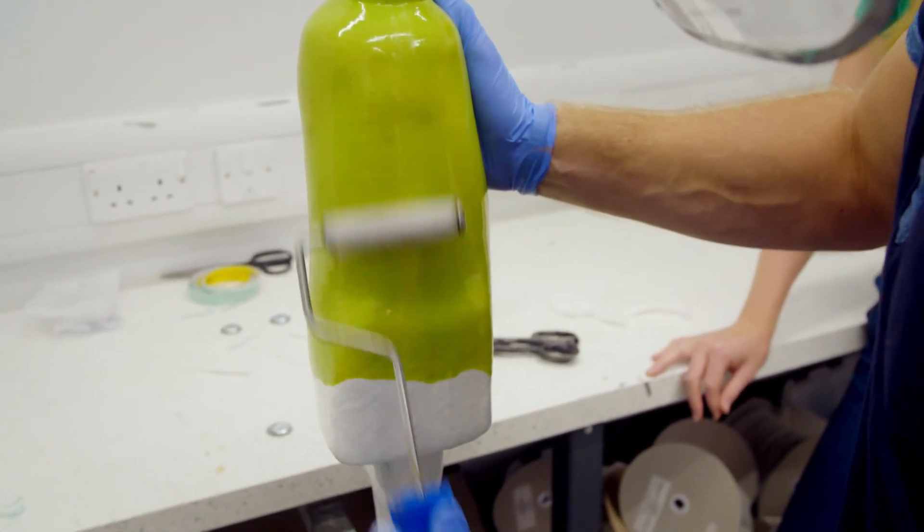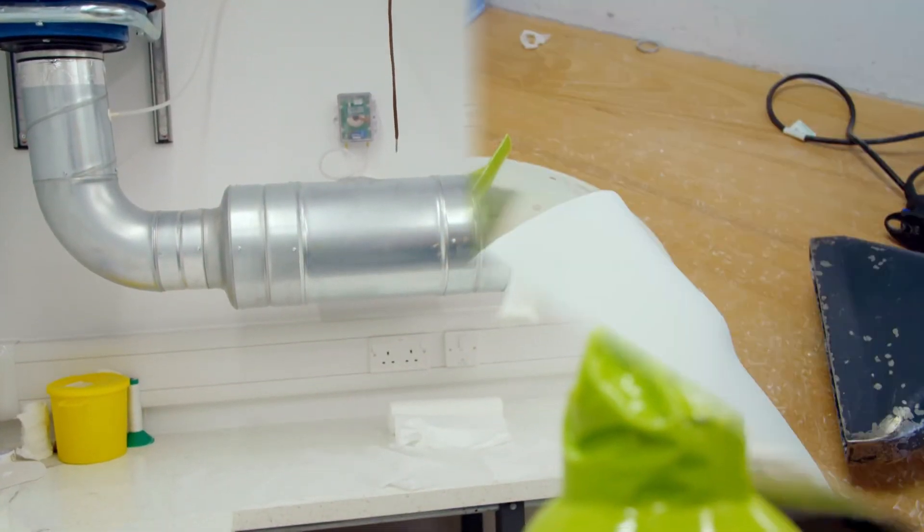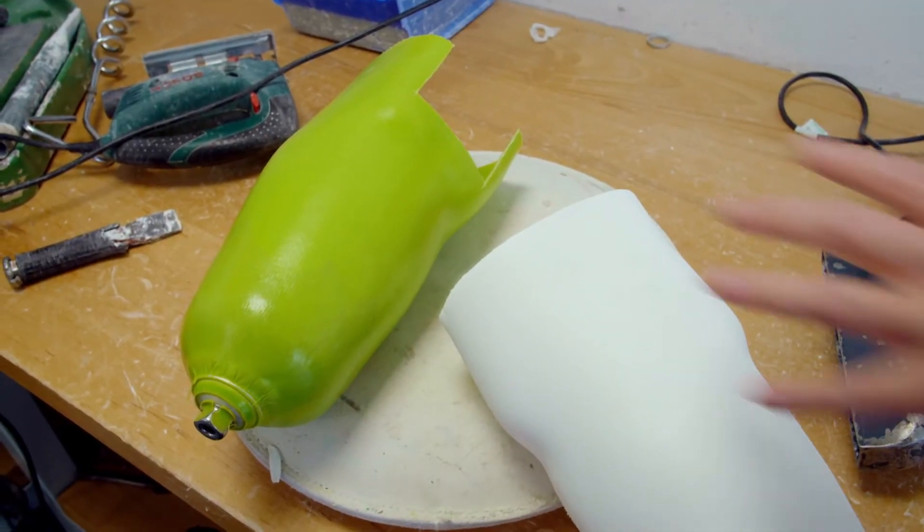Once it's finished, the resin will be left to dry till it goes nice and hard. An hour later and the socket is ready.